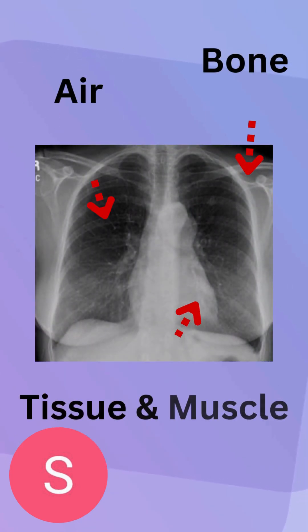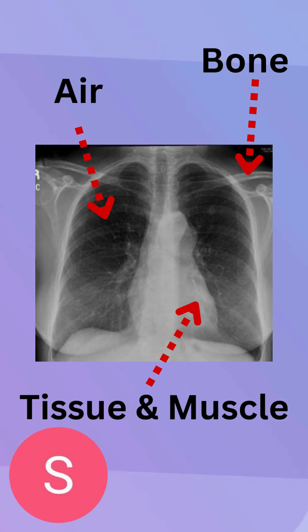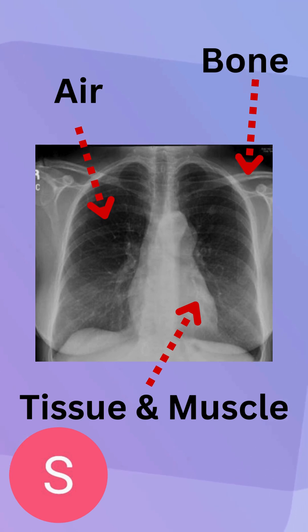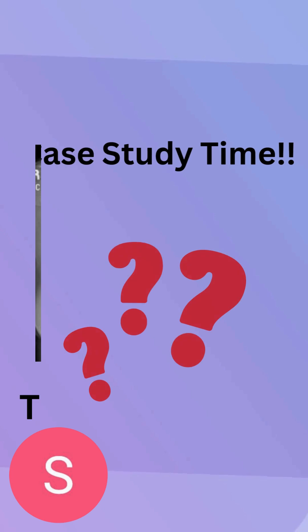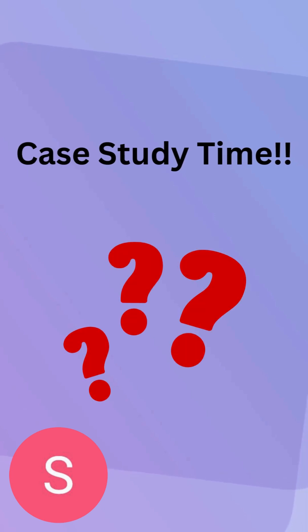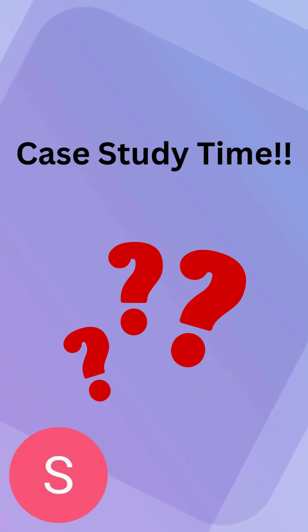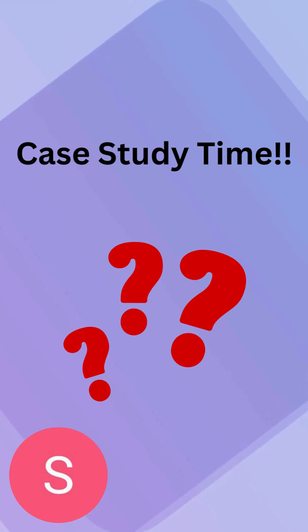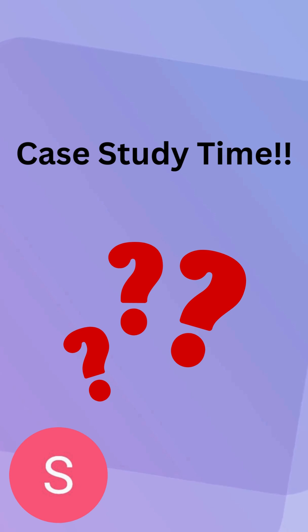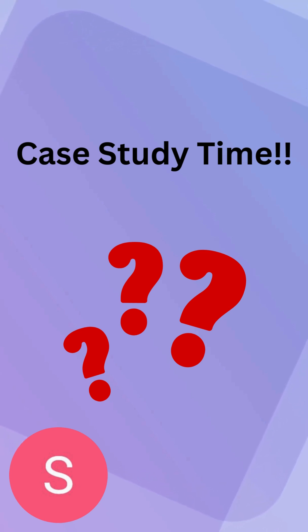Just like always, a quick orientation to guide ourselves based on the background of the gradient densities experienced with the human body during an x-ray scan. Now today we'll be doing something a little bit different. Instead of me presenting a case study, I'll let you guys try and decide what may be the problem with some of these chest x-ray scans.